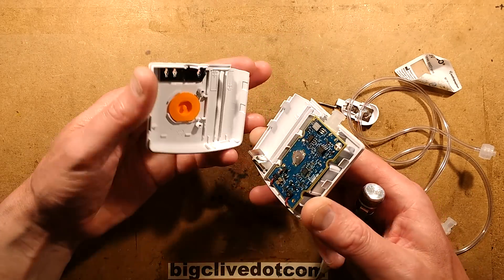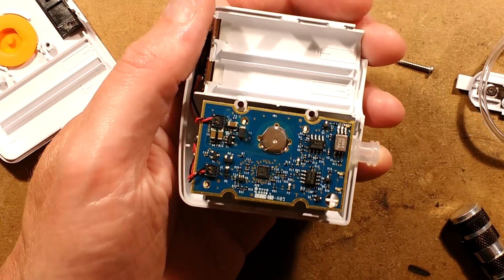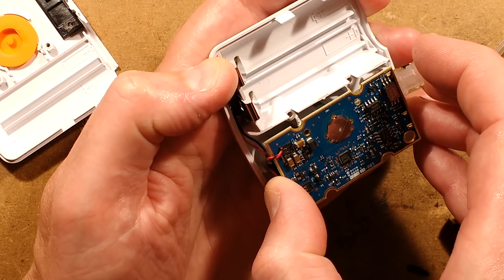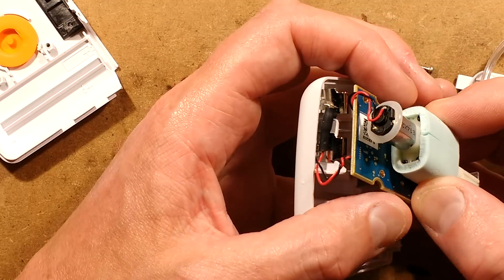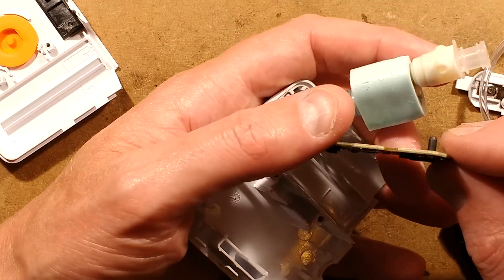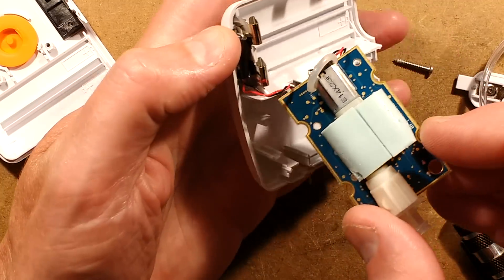It's not clipped together - oh, it's quite a neat little circuit board. Getting in close: there's a little tactile switch, two very low-profile connectors, and the pump underneath. Let me lift that up - there's a little vacuum pump with a motor, and a port onto a pressure sensor. That's quite sophisticated - it is actively monitoring the pressure. I'm going to take a picture of this so we can take a closer look at the circuit board.